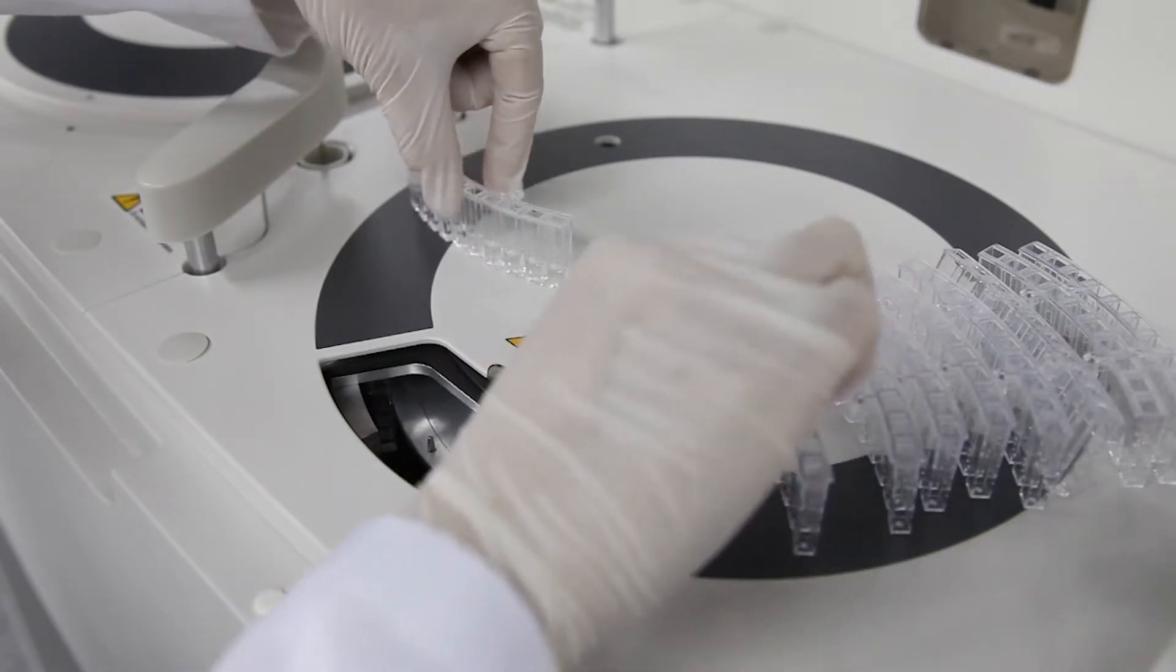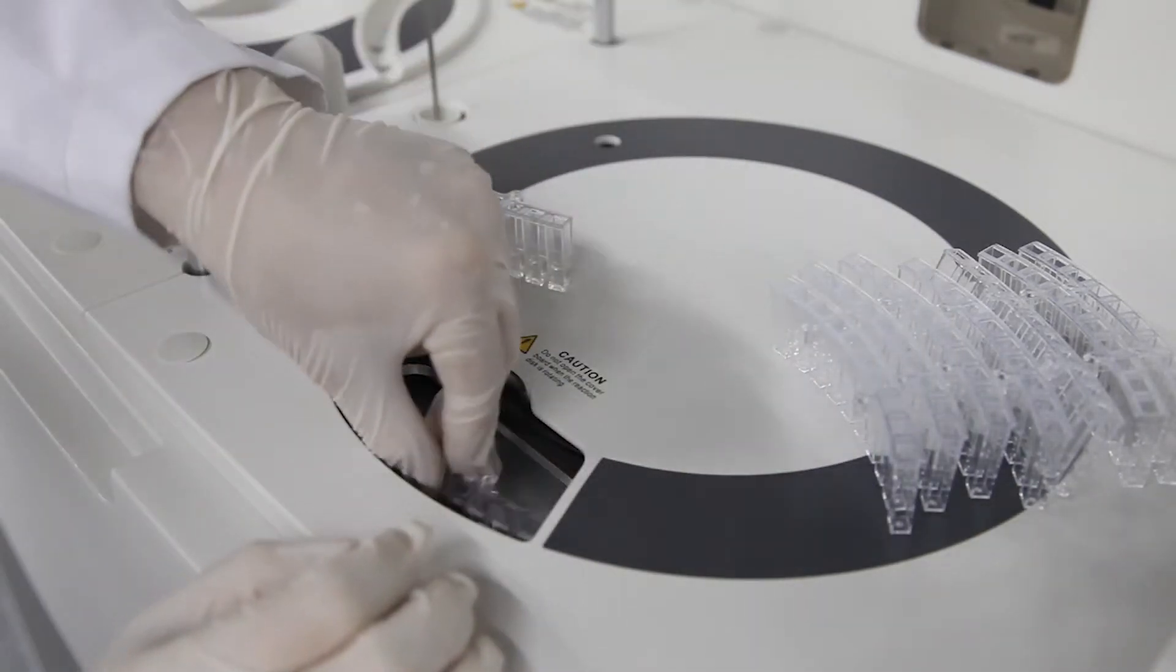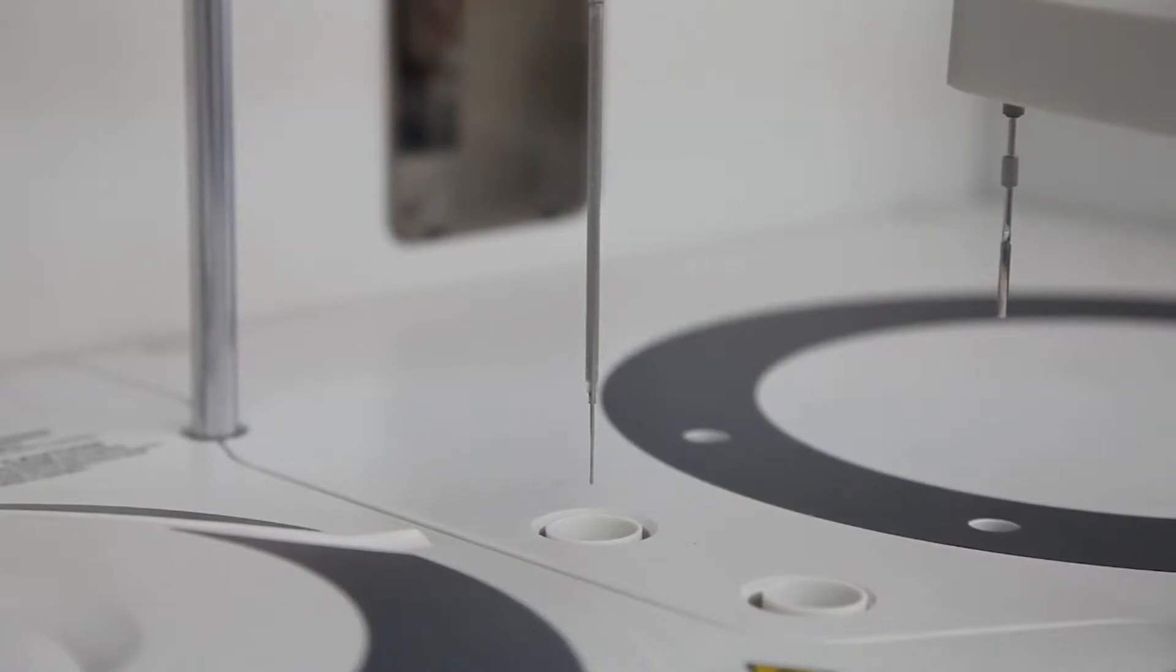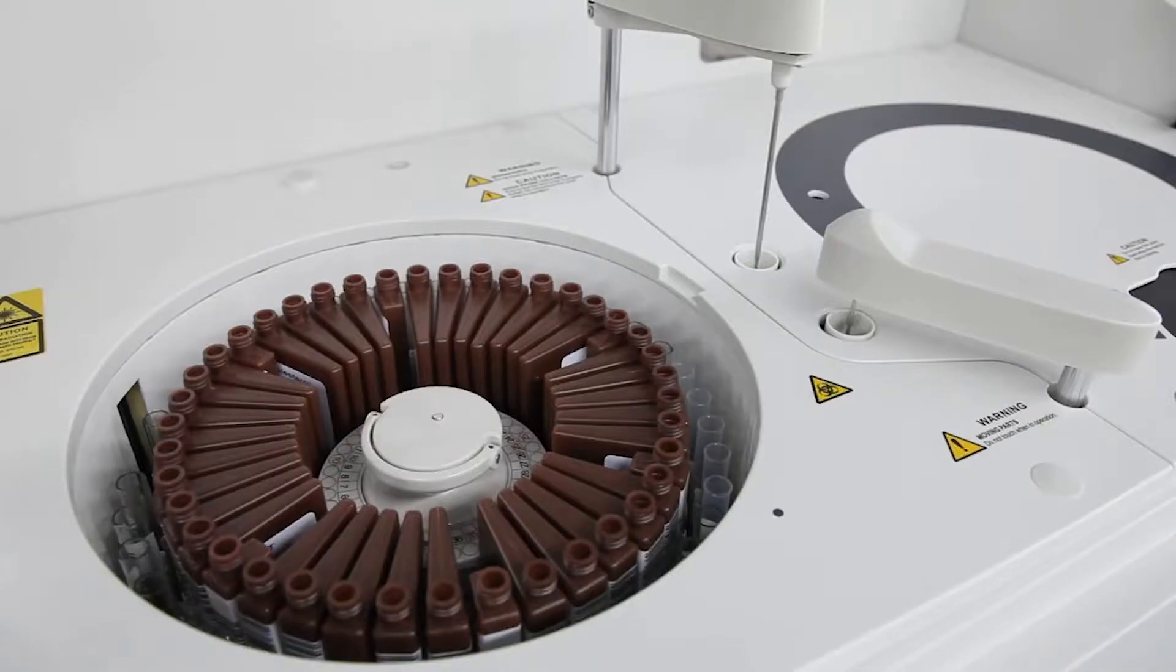This feature eliminates potential carryover that may compromise patient test results. The combined reagent sample probe not only performs liquid-level detection, it also offers vertical and horizontal probe collision protection.